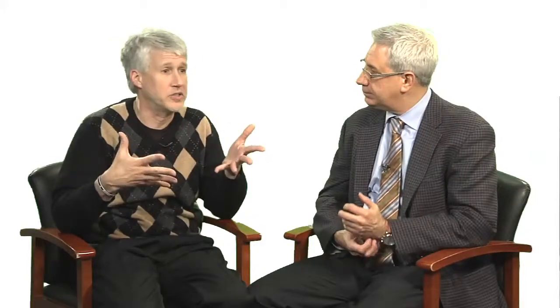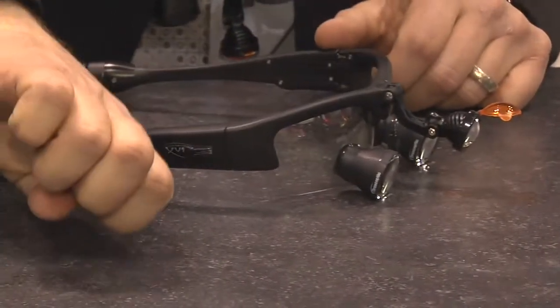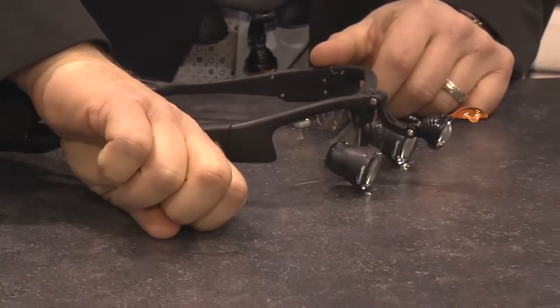Track lights have really become a thing of the past. From an infection control standpoint, one of the neat things about this system is the on/off switch — what they call a capacitive touch switch. You can reach up and, even with the back of your arm, tap it to turn it on and off, and cycle through low, medium, and high settings. You can do everything you need without ever touching it with a contaminated glove, which I think is key. And you work better when you can see well — magnification leads to better dentistry, which segues into CAD/CAM and digital impressions.